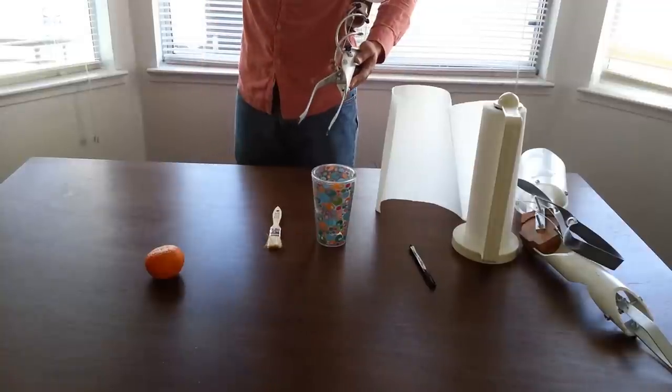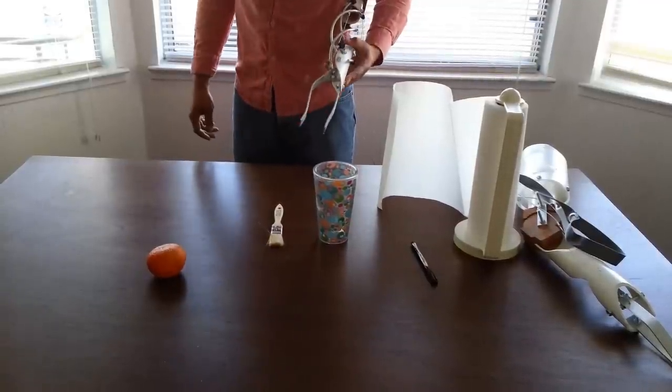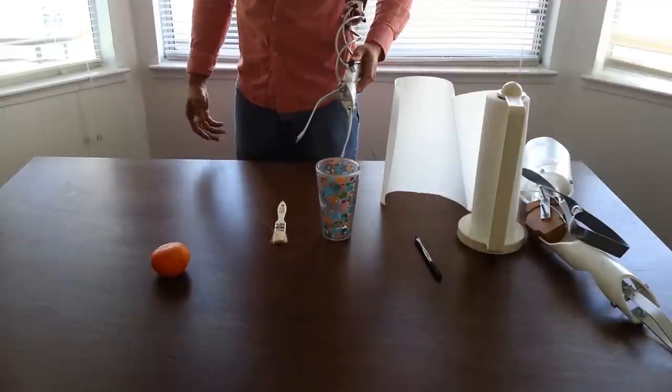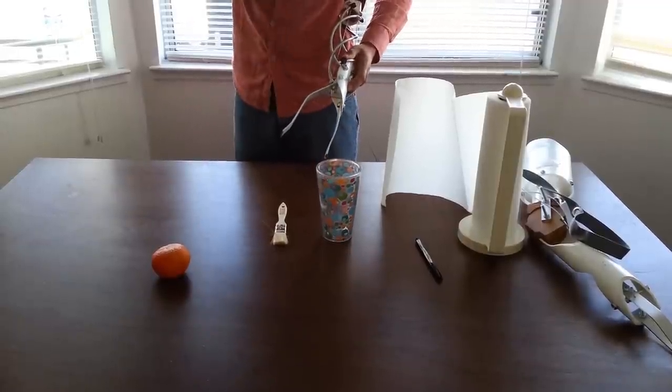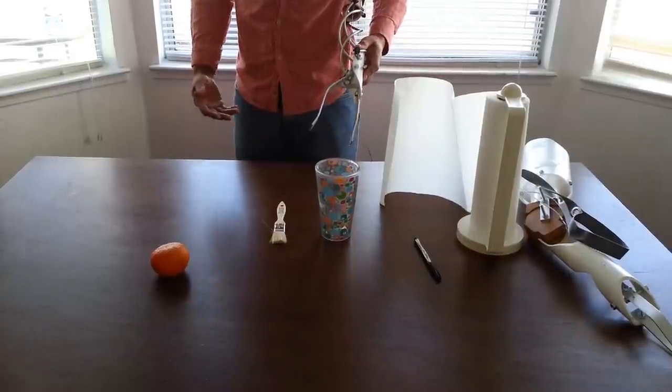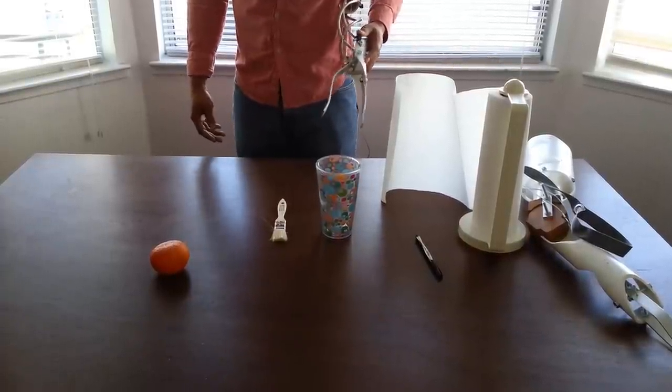And this will be manufactured locally using local aluminum and PVC which they have available in the country. And the high density polyethylene, those sheets will be shipped in, they'll be exported in, pre-cut in the sheets.